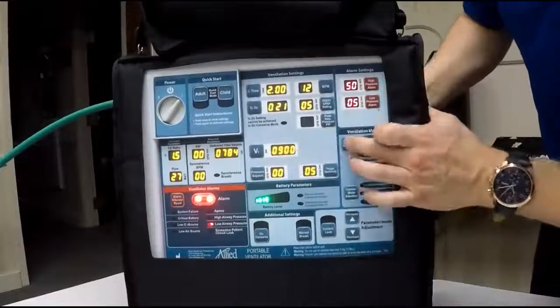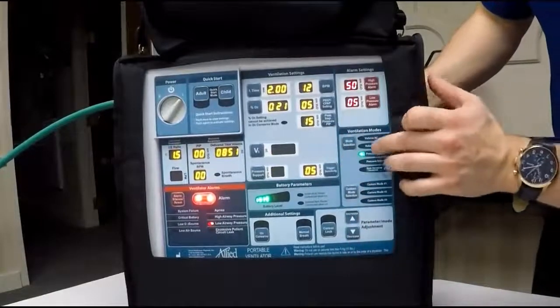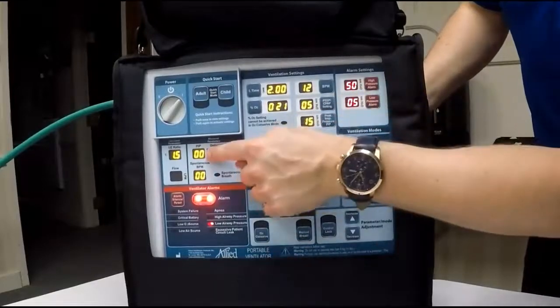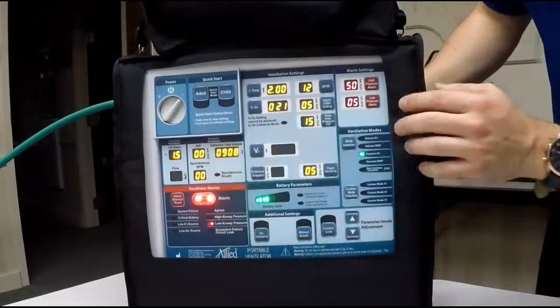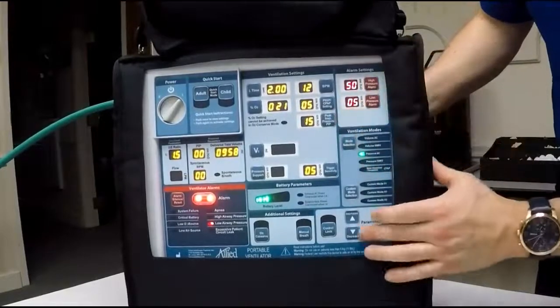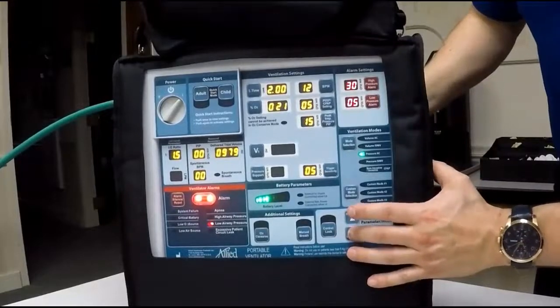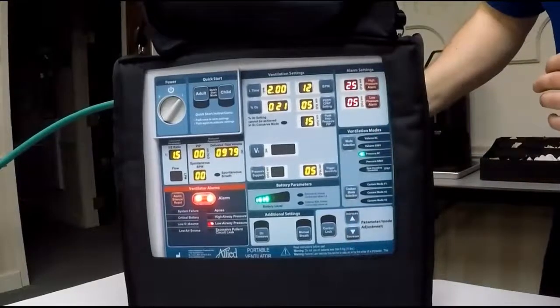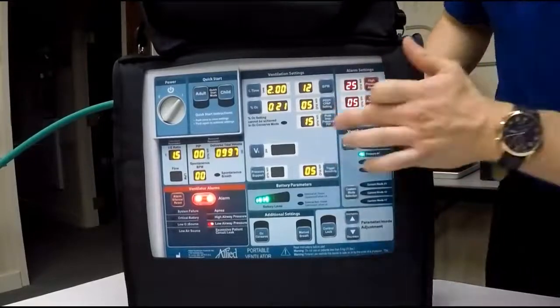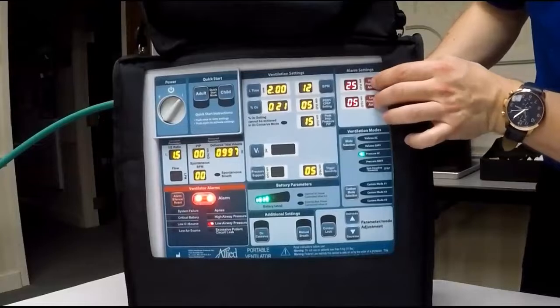You also have your high and low airway pressure selections here. These are very important for the safety of the patient and to make training a little bit easier. I'll put it in a pressure mode. We're at 15 centimeters of H2O. So that's the readout that you're going to be looking at right here. 50 centimeters of H2O is significantly too high. You're giving the patient 35 centimeters of pressure in their lung and airway, which can cause possible issues during transport. So 10 above this number and 10 below this number is perfect for your high and low airway pressures, which we have set right here.